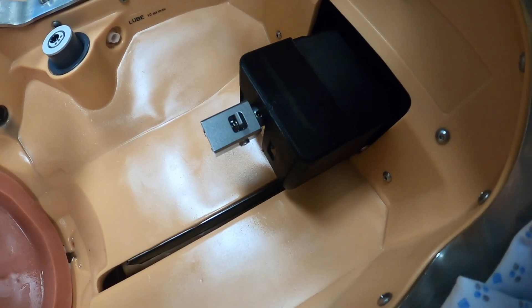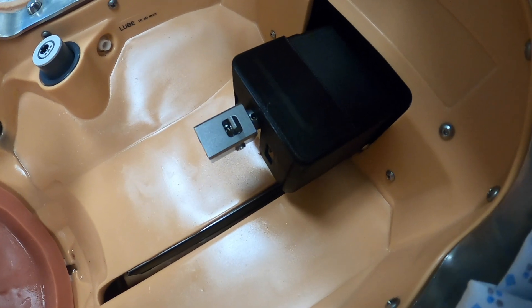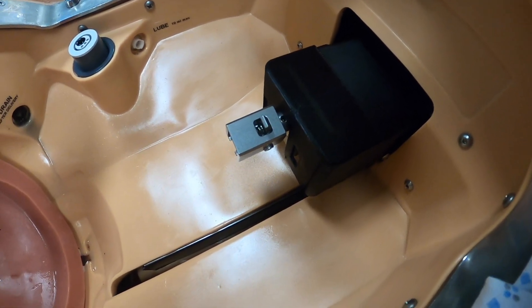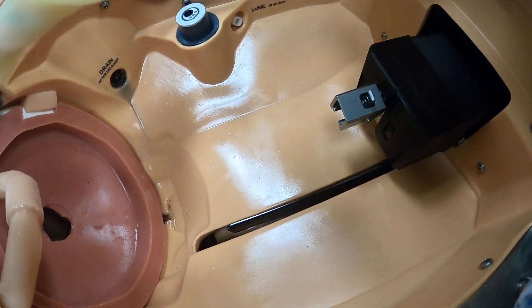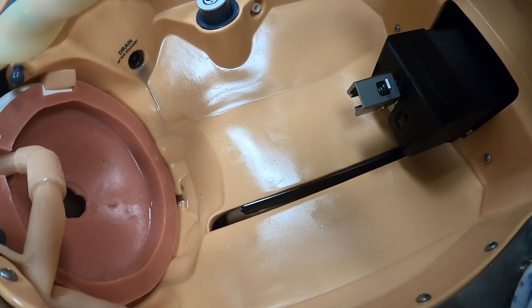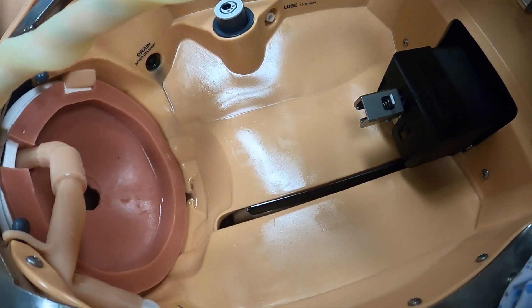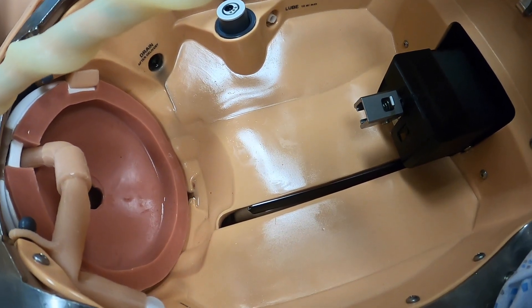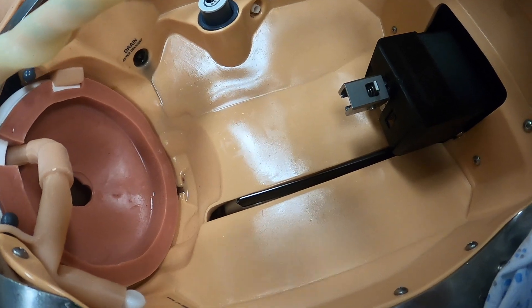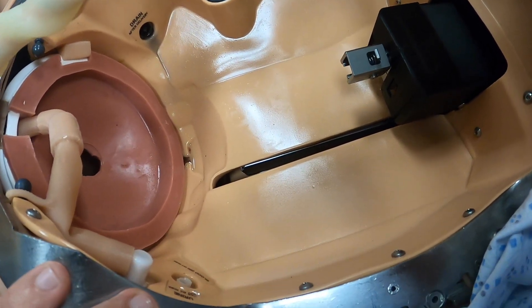We can do very quick deliveries, or we can have deliveries go up to an hour or longer depending on the scenario. We also induct fluid into the mannequin so that during the delivery we can represent normal discharges from the birth, and we can fill it with more blood to represent a postpartum hemorrhage.